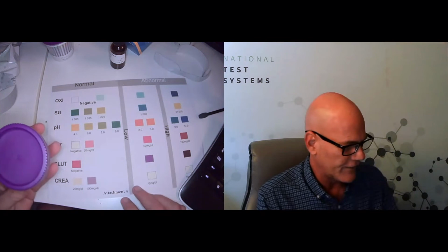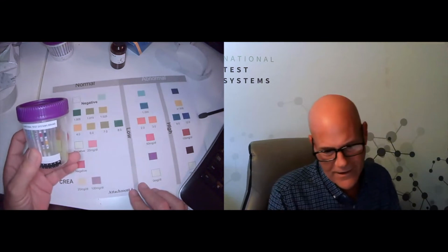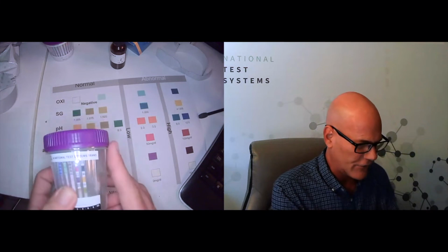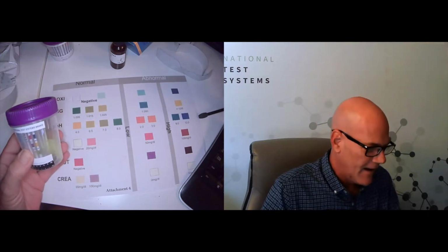All right, next we're looking at the creatinine. And yeah, I should have probably waited. It looks like these didn't get saturated properly, so please bear with me. Next, we're looking at the creatinine level on this strip here, and you can't really make it out. It looks like it got smeared or it's not quite coming in all the way, and that was really just me jumping the gun, so I apologize for that.